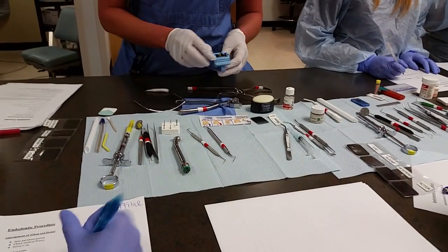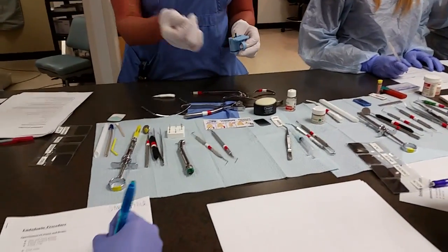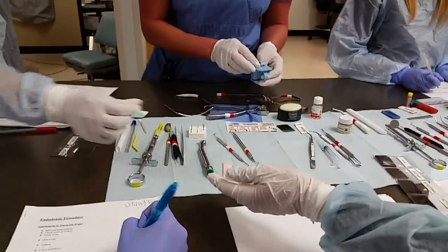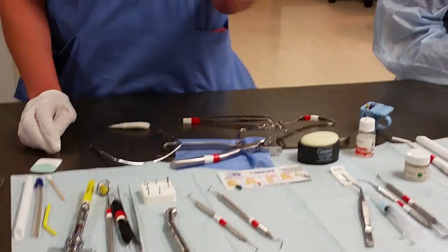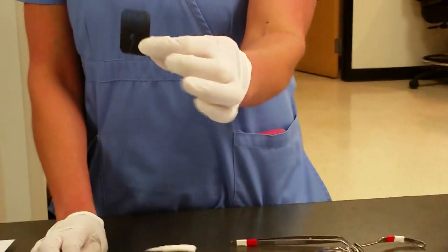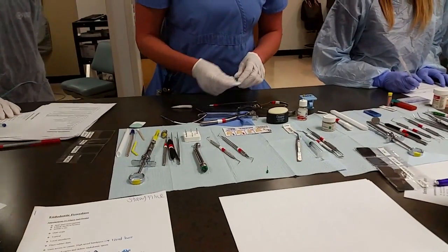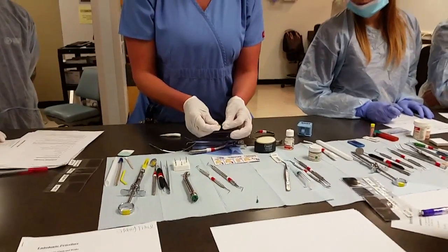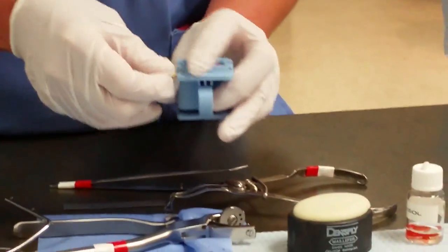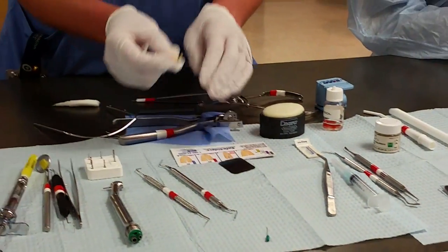The files come in sizes 10, 15, 20 — they go up by fives. After the nerve is out, we would start with the 10 file — the purple file — and place it into the canal, then take an x-ray picture with the file in the canal. We're learning how long the canal is. Each canal is measured, and we put rubber stoppers on these little files to tell us the length of that particular canal.